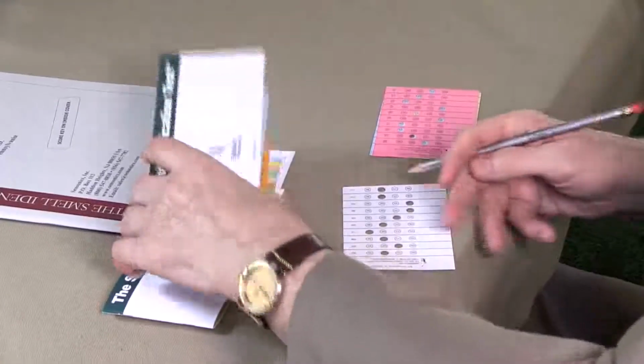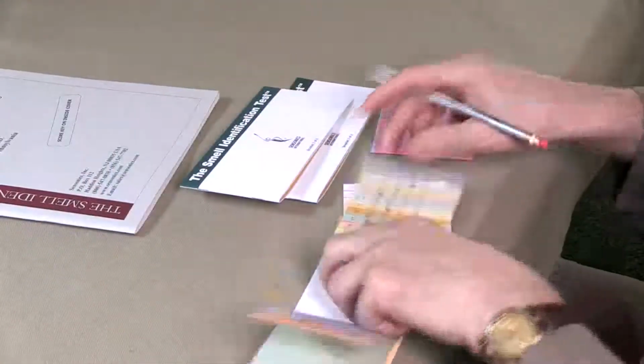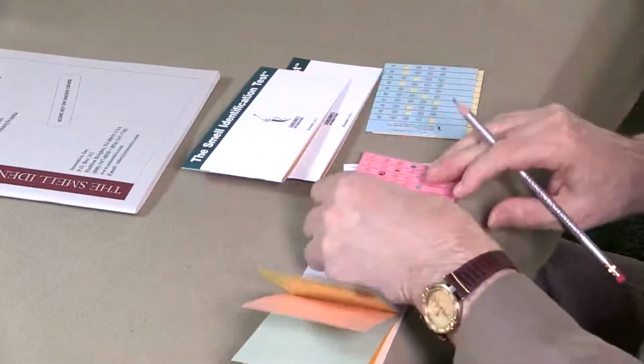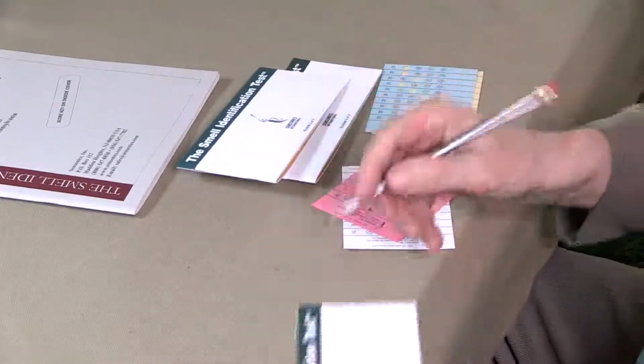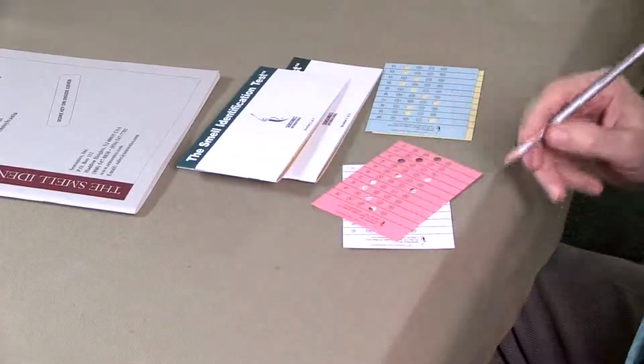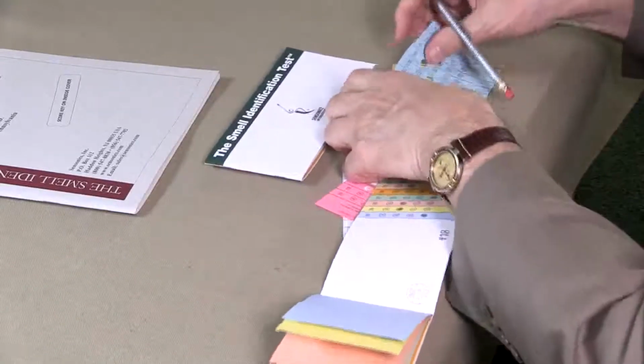So the second booklet, then, the scoring key gets applied, and on this booklet there were 2 missed. So we marked them like that, minus 2, on the front. The third booklet, we did the same thing.